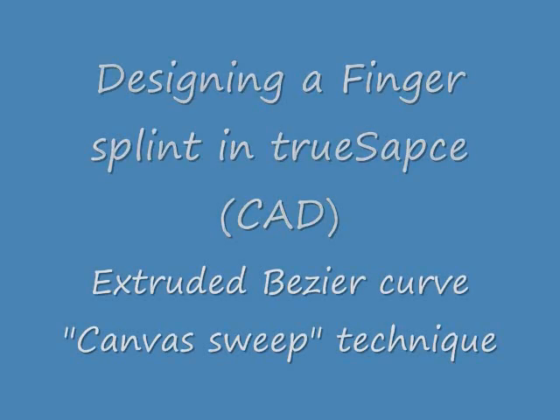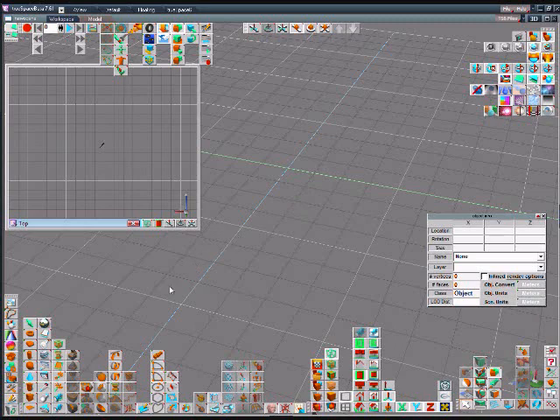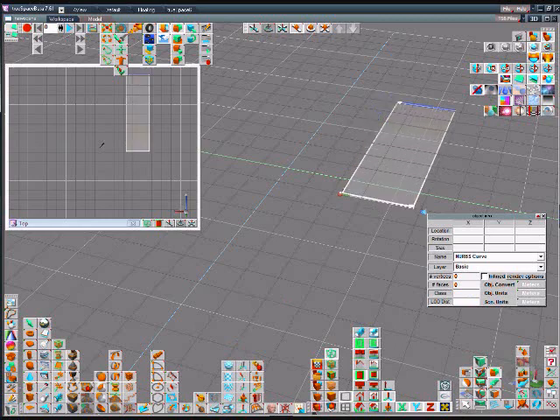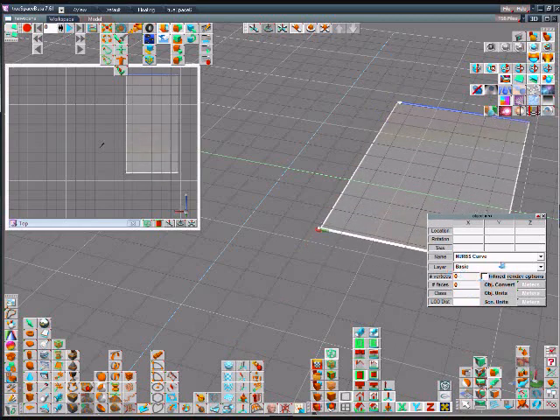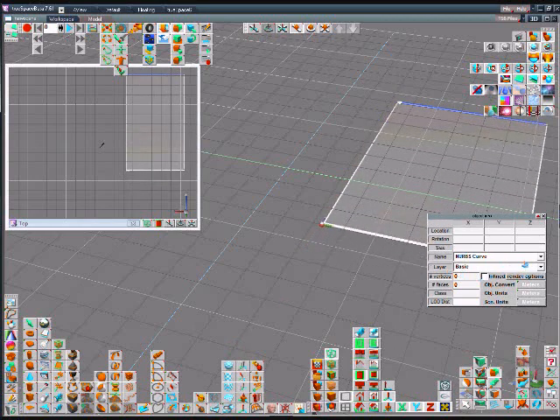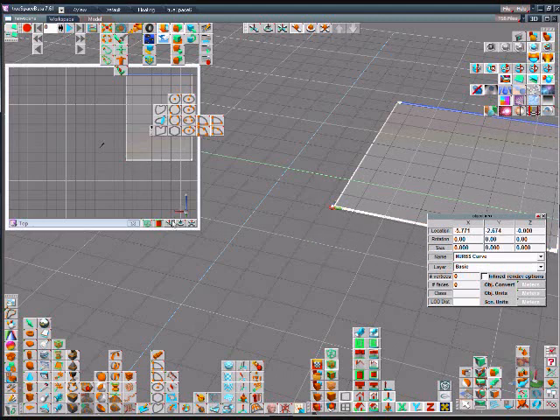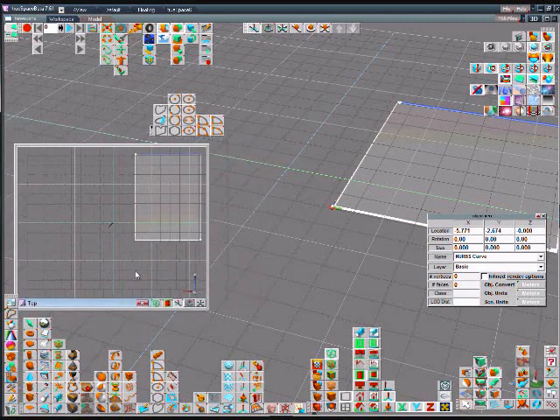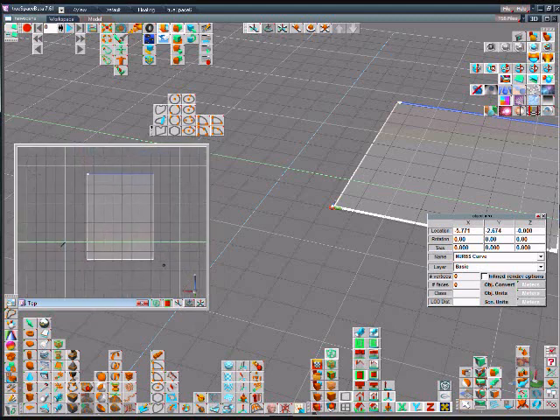This video shows how to design a splint using a canvas technique. First we put down a canvas on the floor, then we'll select a curve or polyline. It's a way of using bezier curves to control how a line curves given a few points.